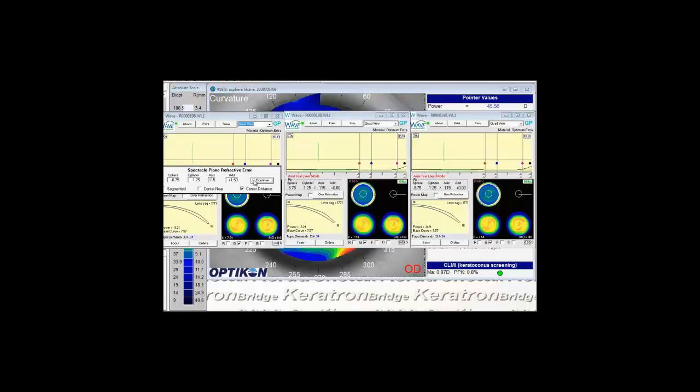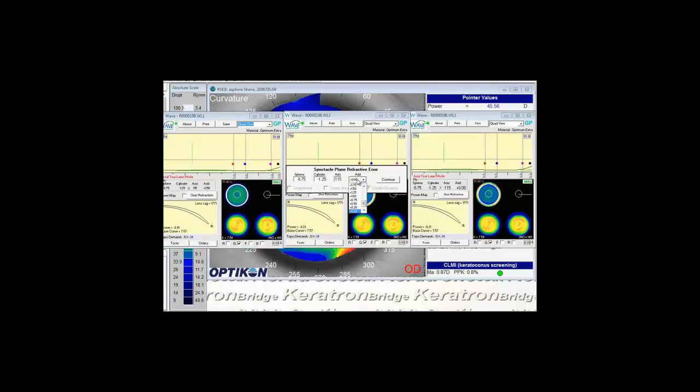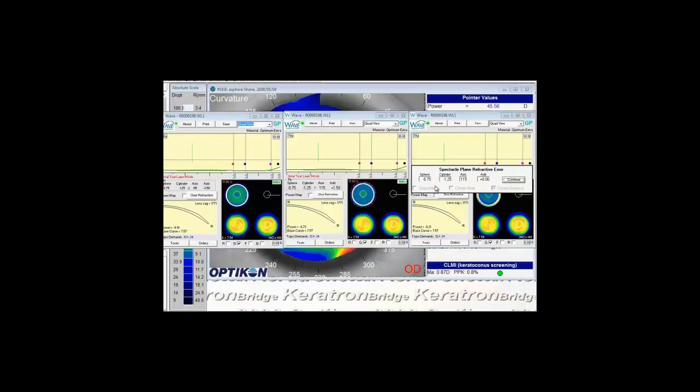On this one on the left I'll keep it a center distance. In the middle I'm going to do a center near. And on the right I will do a segmented.